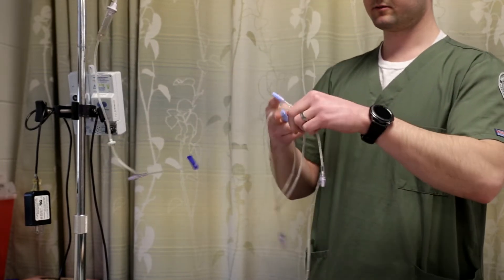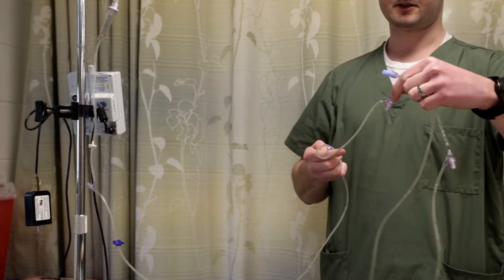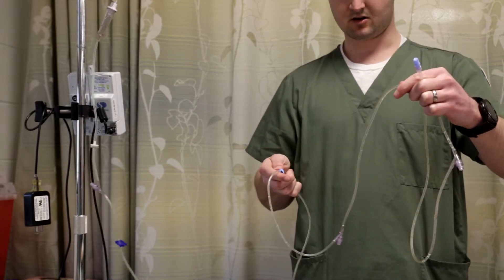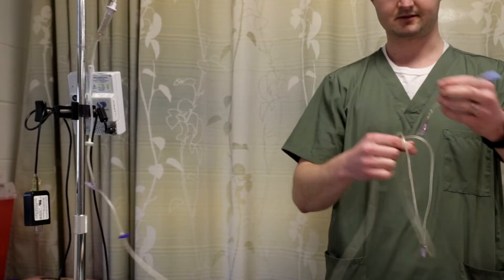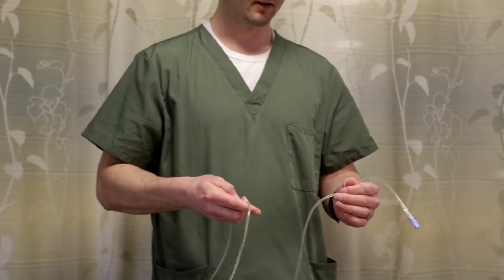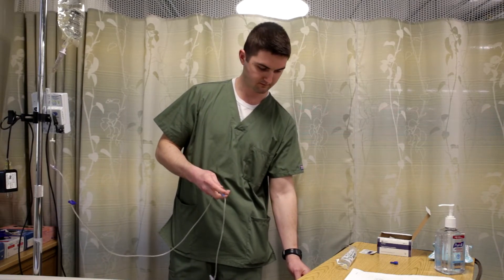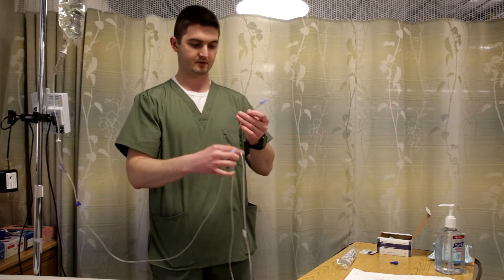You want to watch it as it goes through. As I open it, I'm making sure that I get my fluid having this upside down, so I watch it go through. My line is right there — I'm opening it up again. Now that I have the fluid through that one, I'm going to make sure that this one is upside down, having the fluid go up to the end there. You can control how fast the fluid goes through the line by raising or lowering the tubing and also with the roller clamp. Get the fluid up to the tip here without going past, without wasting any fluid.